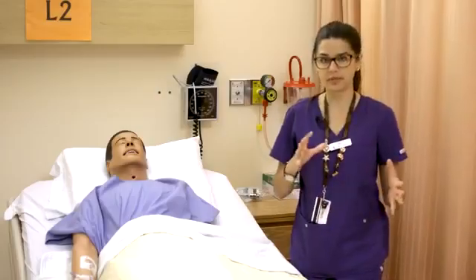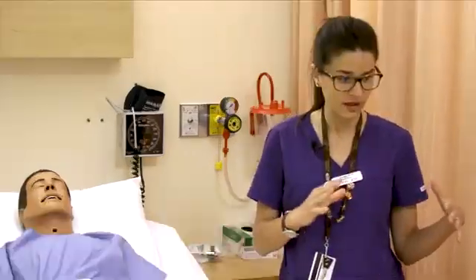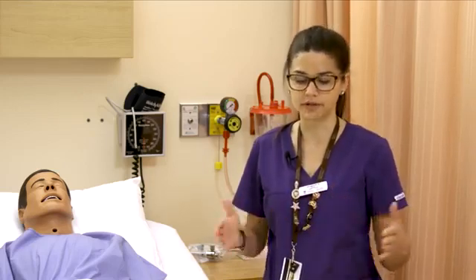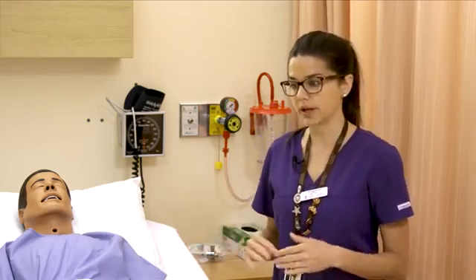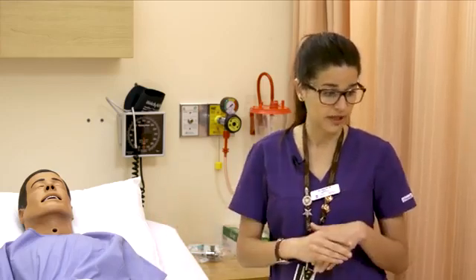Now we're going to go over the different oxygen delivery systems or methods. Before initiating oxygen, you do need to make sure that there is a physician's order for it. Most facilities have standing orders to cover for critical or emergent situations where the person needs oxygen right away. So you just want to make sure you understand your facility's policy and procedure on that and what the standing orders are for your patient.